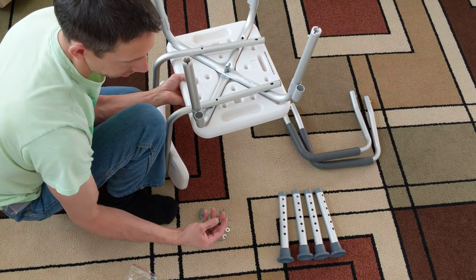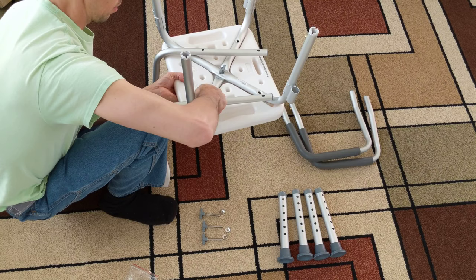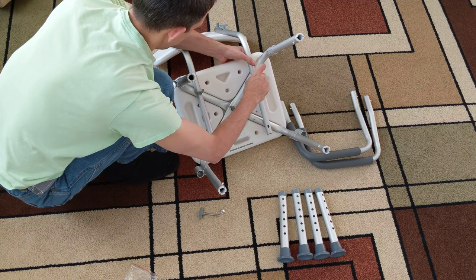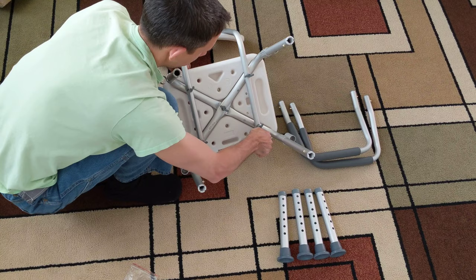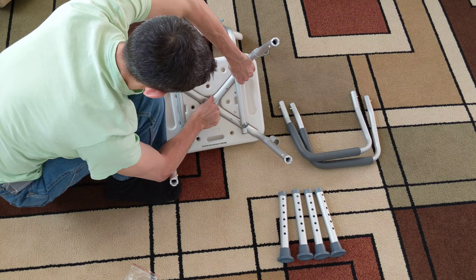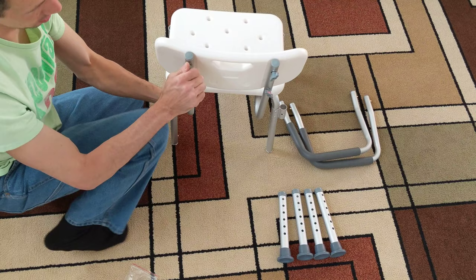Let's put those on first — a little easier. Let's get back here. One kind of — cruising now. There's another one. Put that one over there. One more. Now I can tighten these down a little bit before we go. There we go — okay, that's sturdy there. Tighten these up a little bit now.